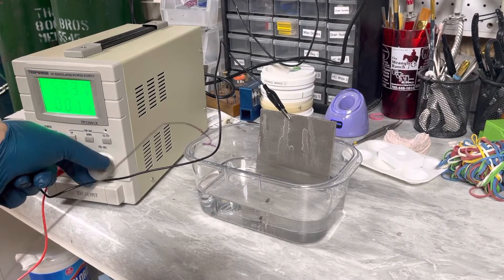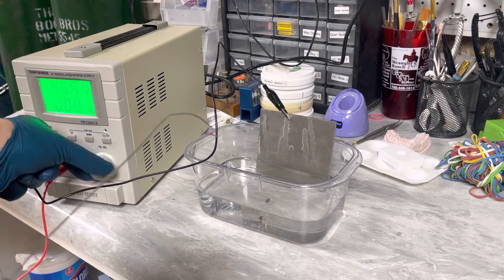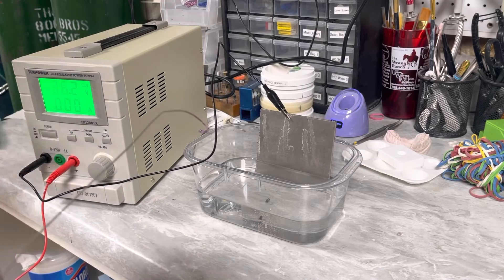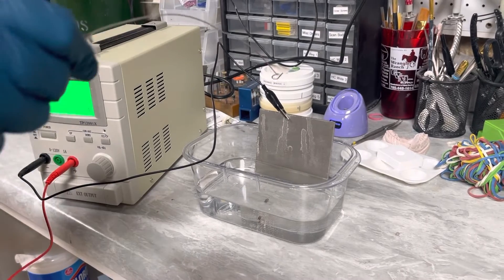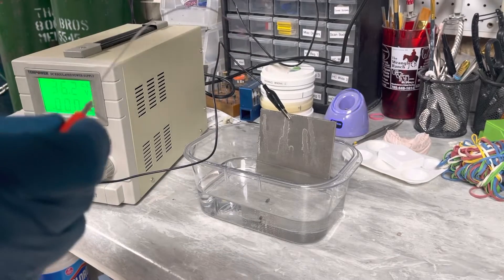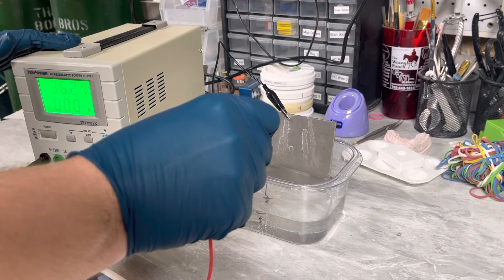Now I'm going to dial this down, dial it down quite a bit here so that way you can see the color changes. So I'll dial it down to maybe 36, see what that shows up. Okay, so then this is on. I don't want to touch this, wear gloves and all that stuff, but then we're going to go down and we're going to touch.